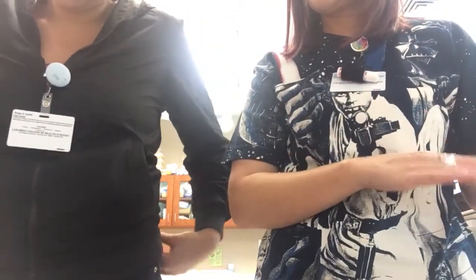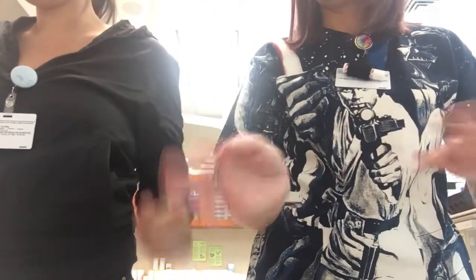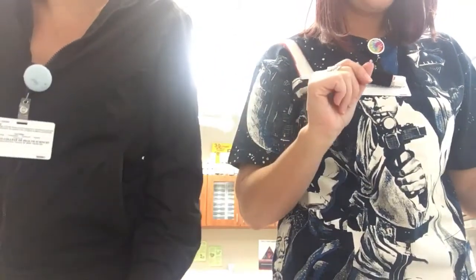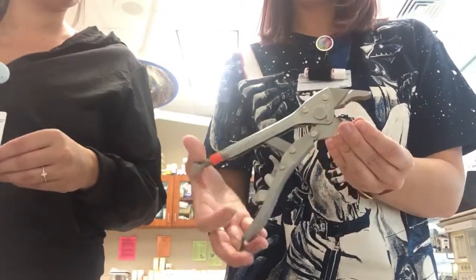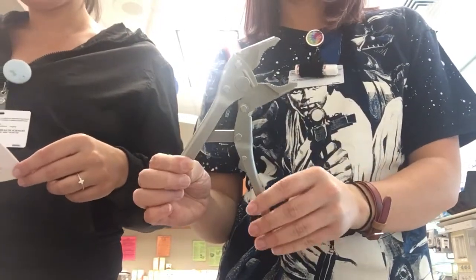So this is week 8. We already have a video from our teachers but at some point that's gonna go away, so we figured we would make one and we have a guest star today. We'll start with this one. This is a vice grip, and we don't really know what a lot of these do so we're just gonna be showing you what they are.